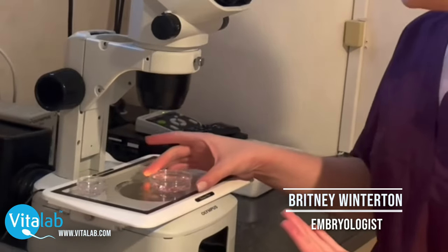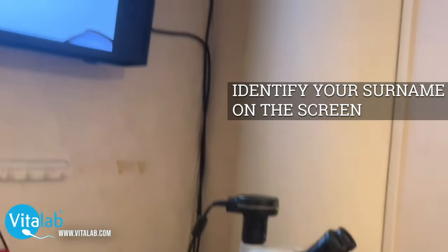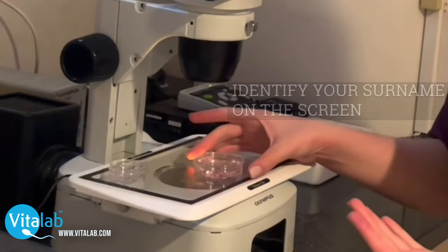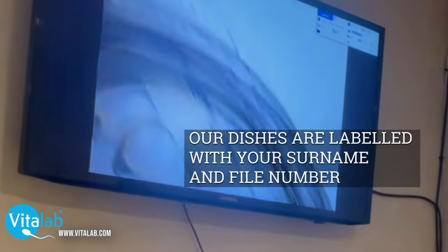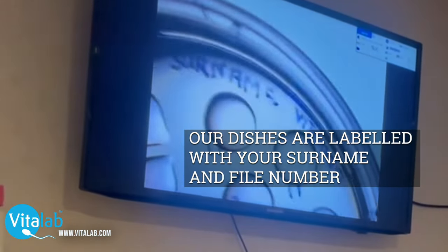From your OPU, we will prepare a dish with your surname and your file number on it. As you can see here, we have an insemination dish. During your OPU, we will ask you to identify your surname on the screen — this confirms that we are putting your eggs into your dish. Our dishes are labeled with your surname and your file number on both the bottom and the lid.